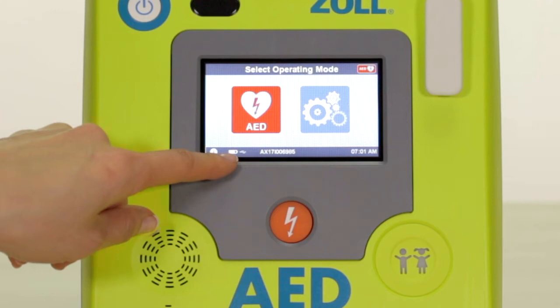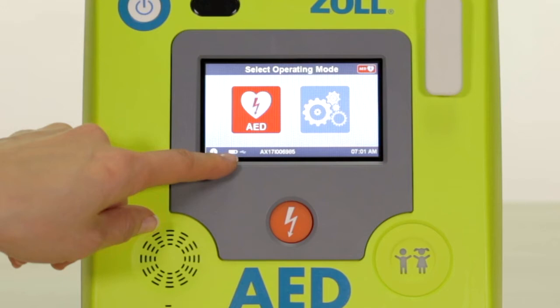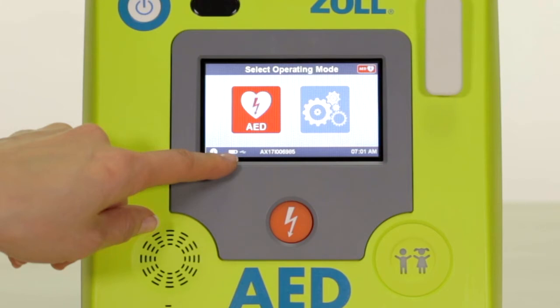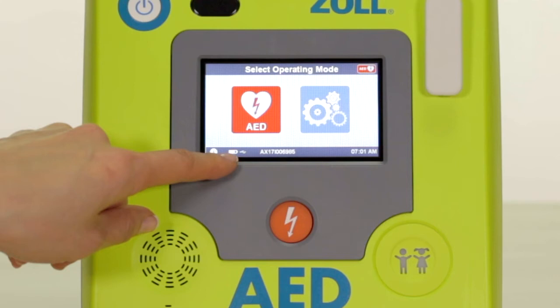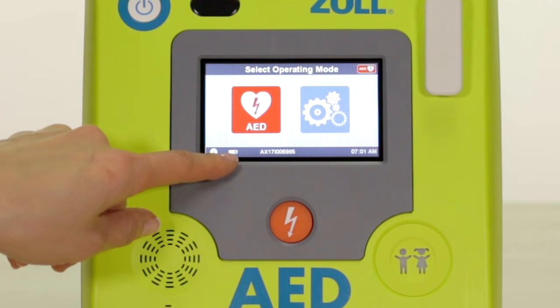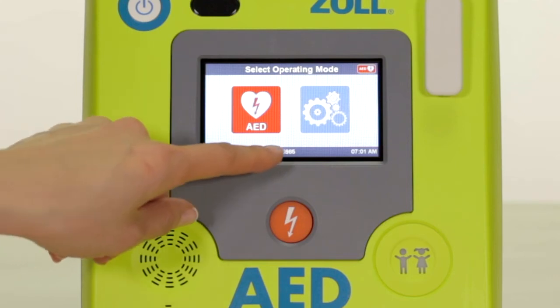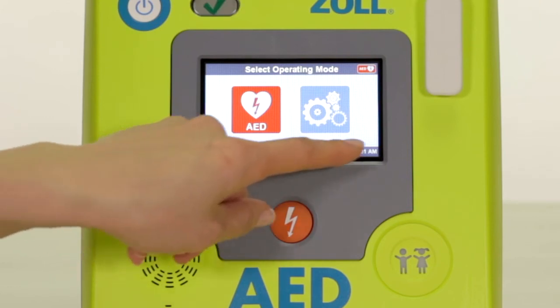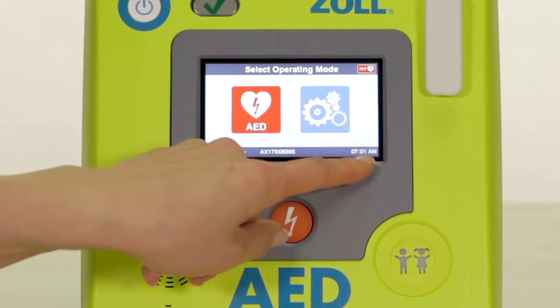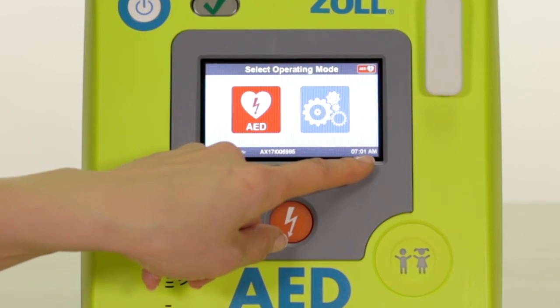You may also see a flashing icon next to the battery power indicator that will tell you the AED3 is initializing the USB port. If a USB drive is detected in the USB port, it will stay lit. If no USB drive is detected, the icon will disappear. Additionally, the serial number or device ID of the AED3 and the local time are also displayed at the center and far right of the screen respectively.